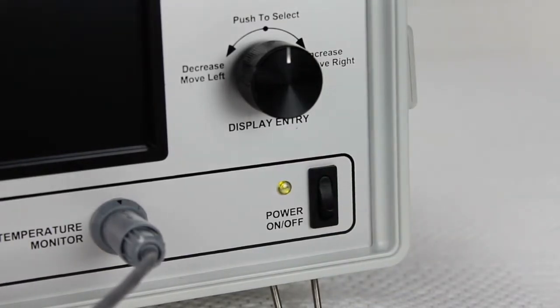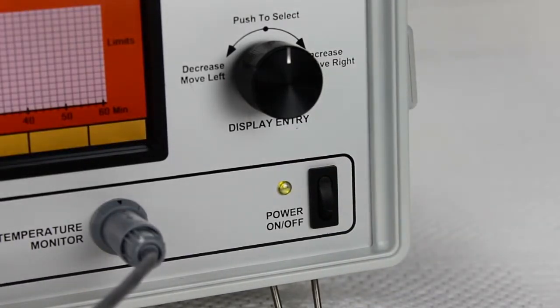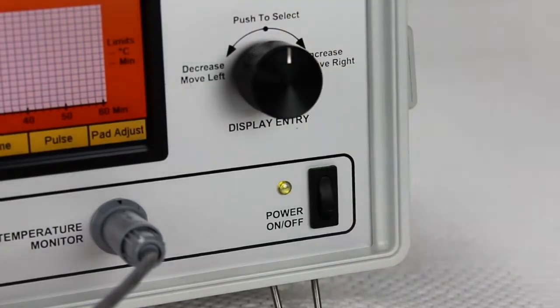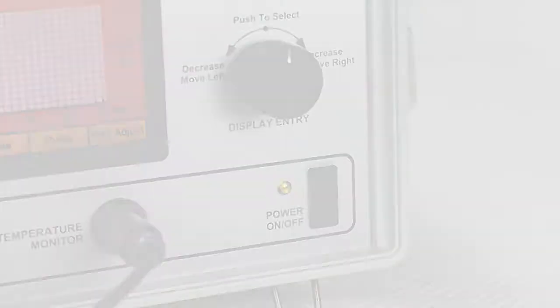When the display lights up, an alarm will sound and the pane on the far right will be highlighted green. Push the round selector knob to turn the alarm off and the unit will be ready for setup.